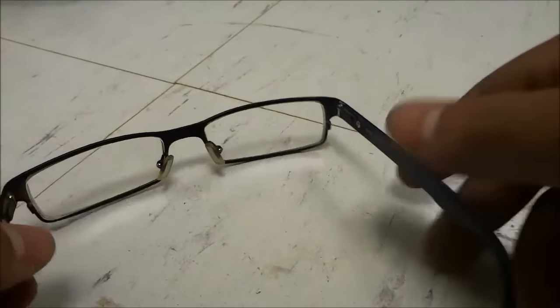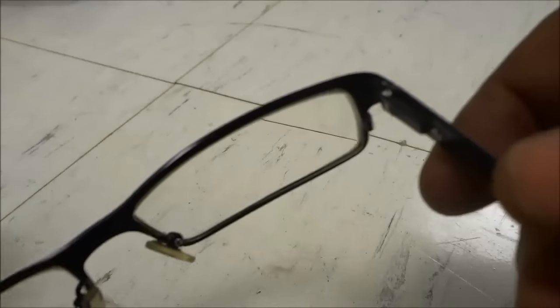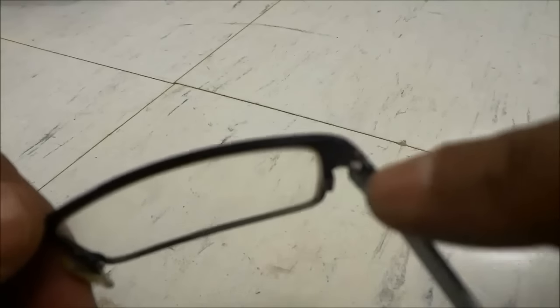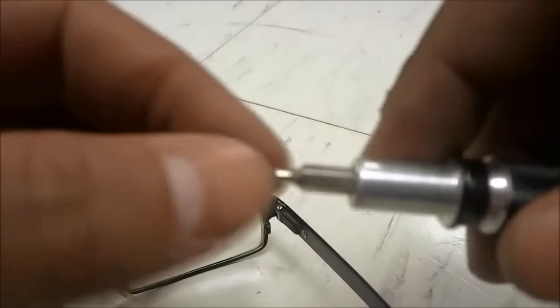What you're going to look for is a screw that is around the loose area. You can see, and I hope that the camera focuses in on the screw, but there is a screw right there and it uses a flat head type of screwdriver.